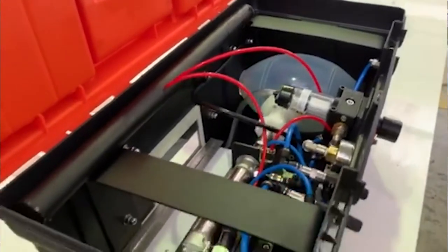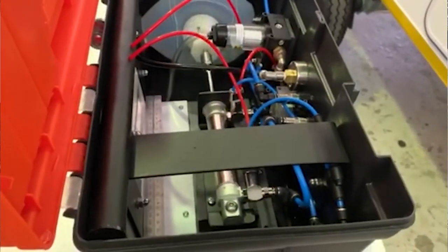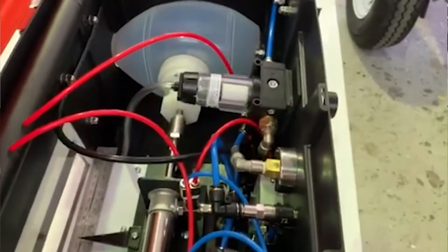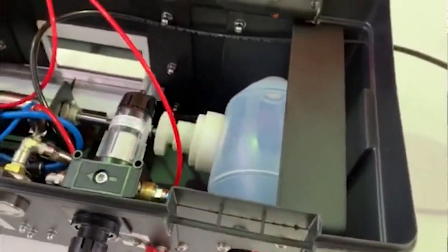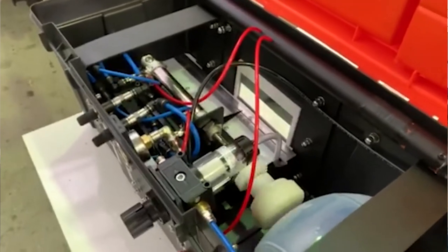We're hoping that this will be at least rudimentary, but at least get it done. It's powered by air only, only compressed air.